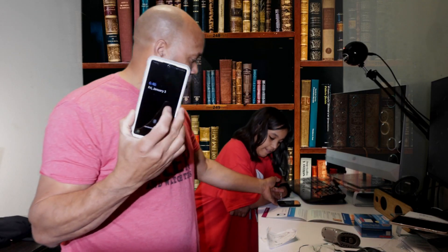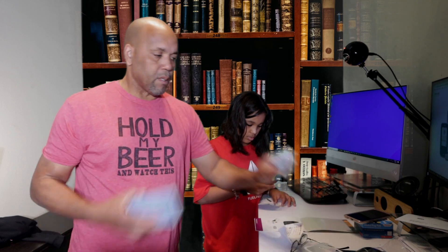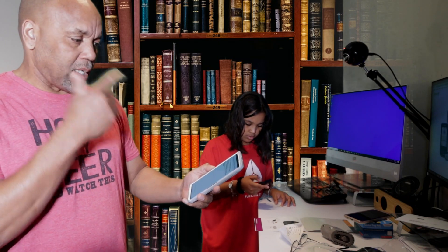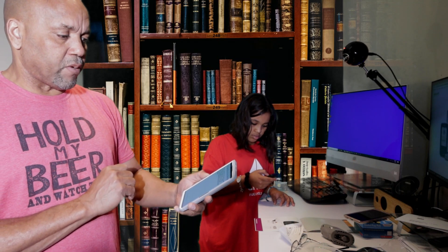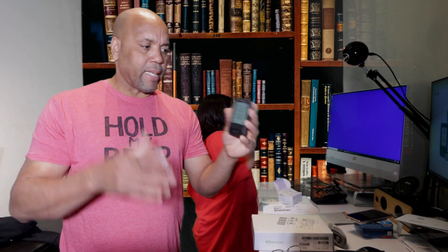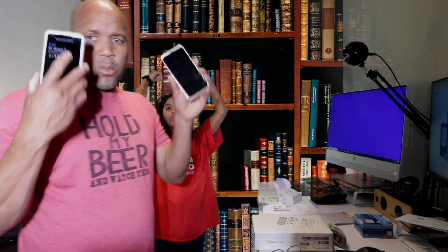Two snaps and it's in. Now we're going to set up the receiver and also download the app from the app store. I'll have it in two places, but most likely I'll be using my smartphone. She's currently entering the code that came from underneath the sensor. On my new phone with the latest Android version, it's telling me Dexcom hasn't tested the app on this Android version. The sensor is installed — but it's going to take two hours to warm up before we get any readings. Meanwhile, I'm looking for an older device because all my phones are running Android 10, which isn't compatible.